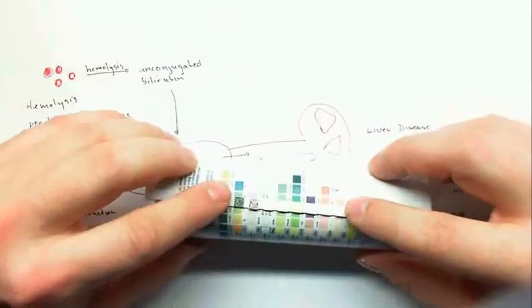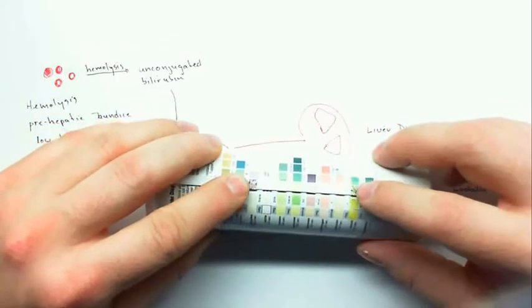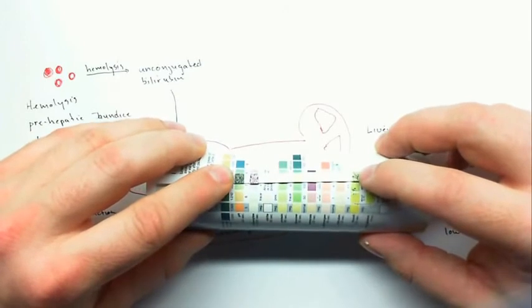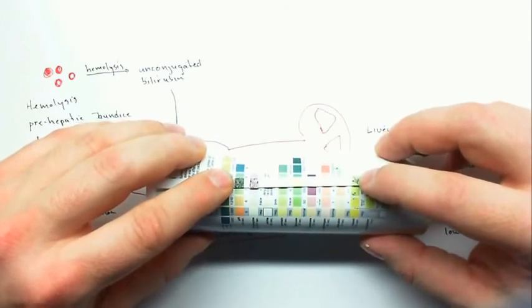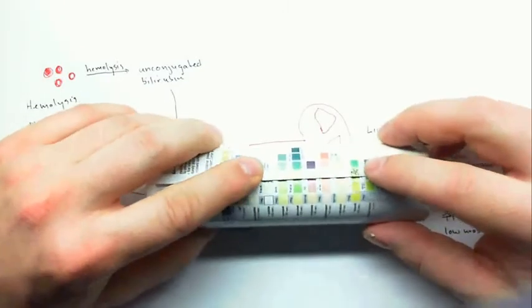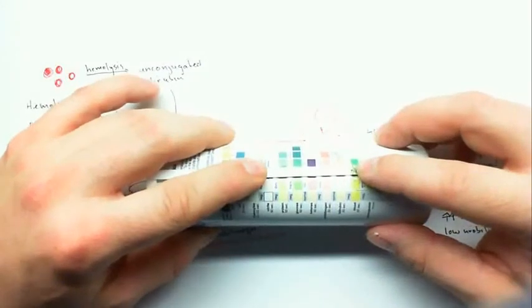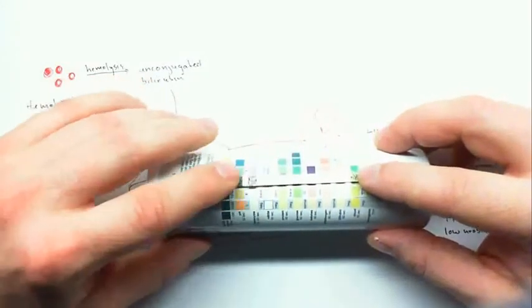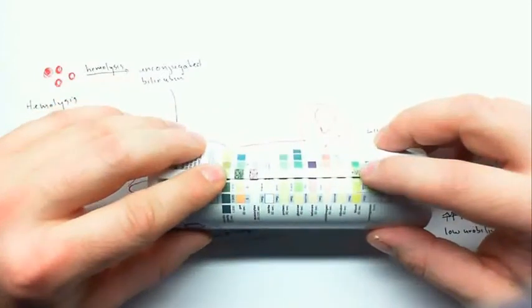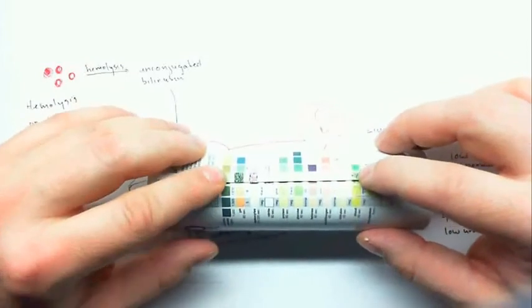And in this one I'm trying to show a basic pH, presence of leukocytes, and also presence of blood. Now the high pH is from bacteria that break down the urea, a normally acidic component of urine, and if that's broken down, then the pH of the urine becomes basic. Leukocytes could also come with nitrites if I wanted to make this a little bit more clear, but nitrites are not necessarily always positive in a UTI, so that's why I left it blank. But having these three indicates a UTI: a high pH, the presence of leukocytes, and whole blood. And again, since there's not protein present, it indicates that this blood entered post-glomerular filtration membrane.